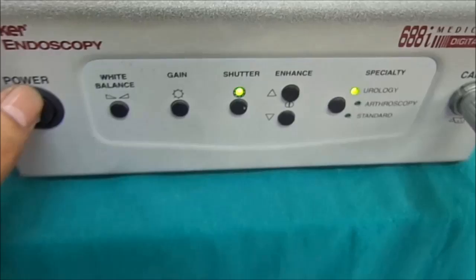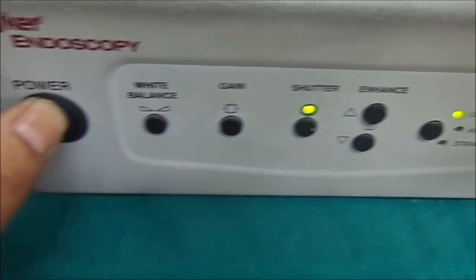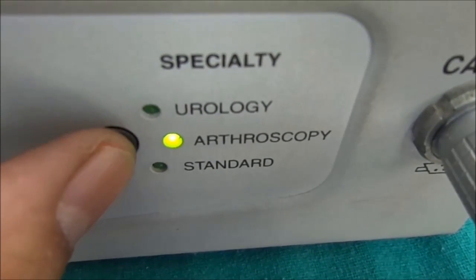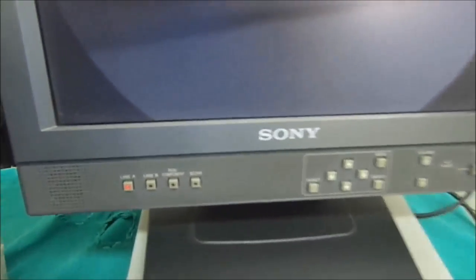This camera can be used for various endoscopies. It has a power switch on and off, and may also have white balance, gain, shutter, and enhanced lens settings. You can select different modes such as urology, arthroscopy, and standard. We usually use this camera for cystoscopy and laparoscopy procedures. This is the medical grade monitor, and as soon as we connect the fiber optic light source to the cystoscope, it is ready for use. Thank you very much.